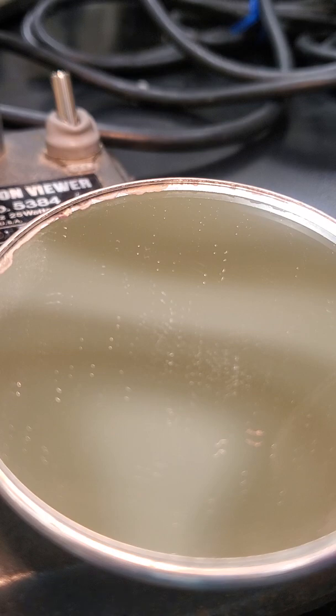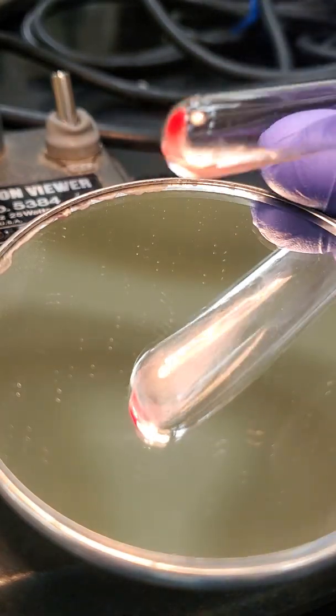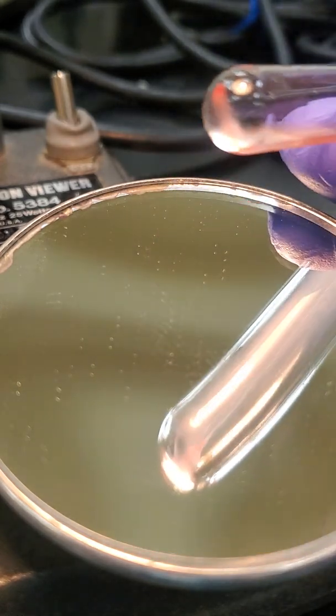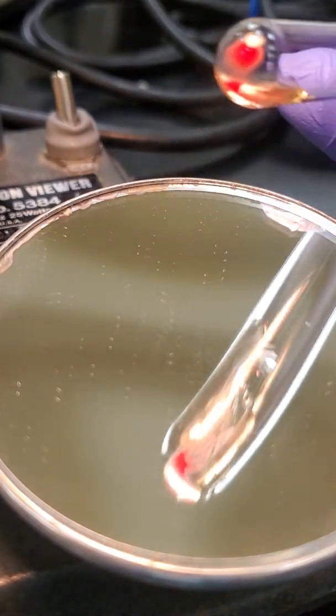So when you're recording that column, you want to put either a capital NT for types that you didn't have to test that for, or either an equal sign. That also denotes that it was not tested. So for every other type, you want to fill it in that way. So continuing on with our unknown number 7. So this is our reverse A cell, and then our reverse B.